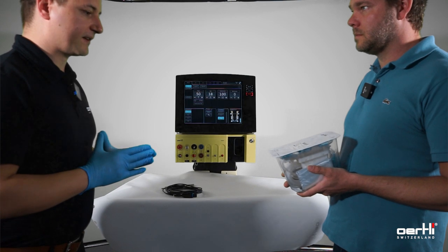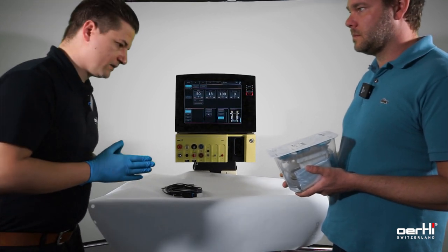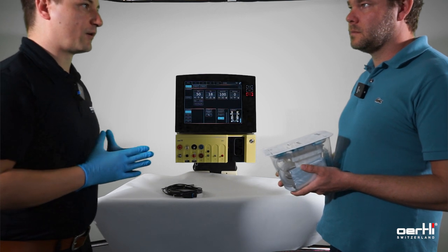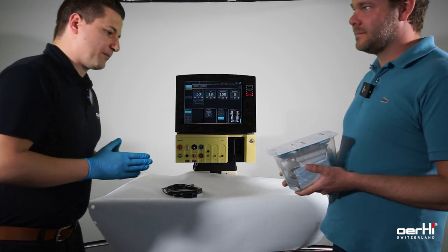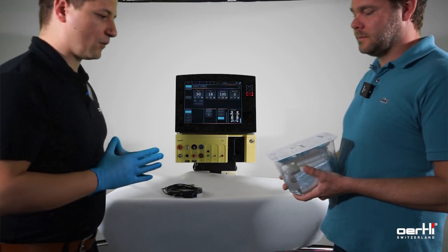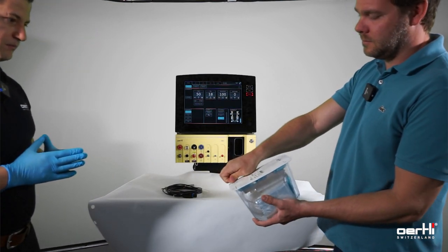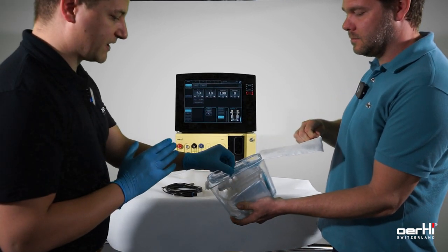Your attendee has the phaco pack. I represent the sterile nurse; my colleague presents the jumper, or however you want to call him. Open the pack in a sterile condition — tilt it slightly away from your side and open from the bottom to the upper part. Here we go, carefully grab the pieces.